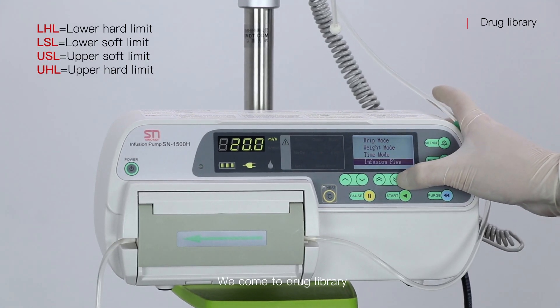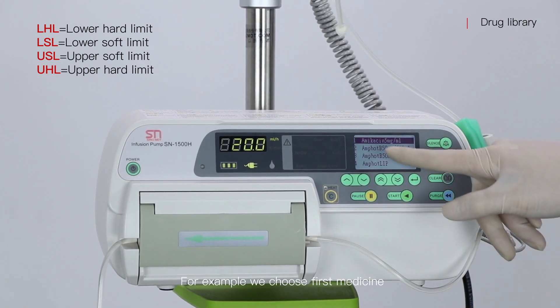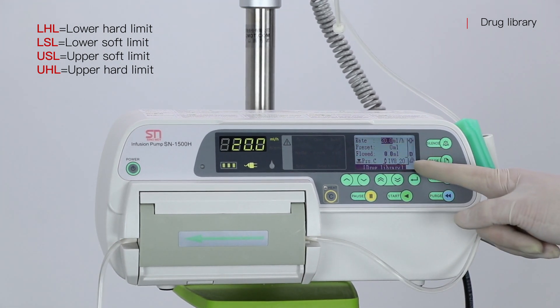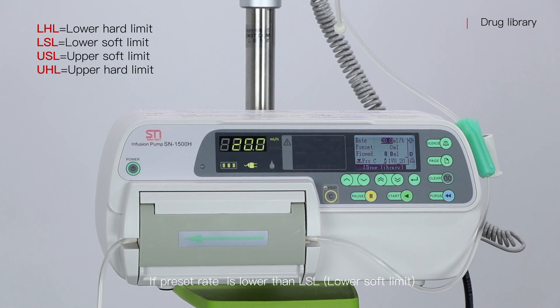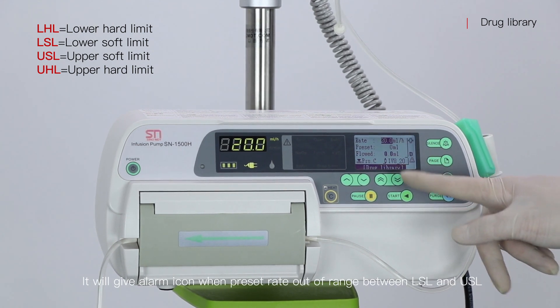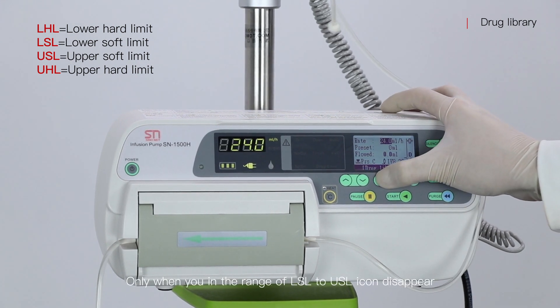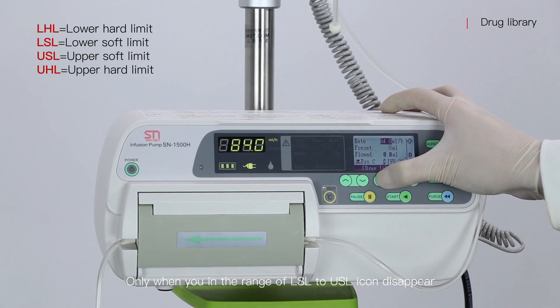We come to Drug Library. For example, we choose the first medicine. If the preset rate is lower than LSL, it will give an alarm icon. When the preset rate is within the range between LSL and USL, the icon will disappear.